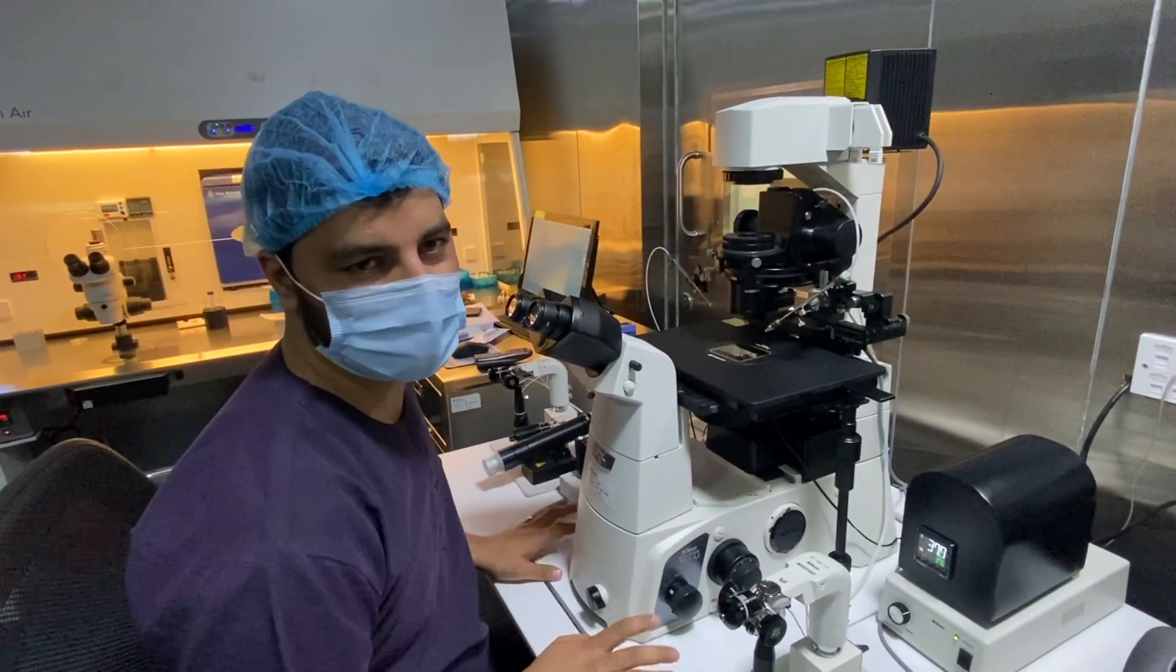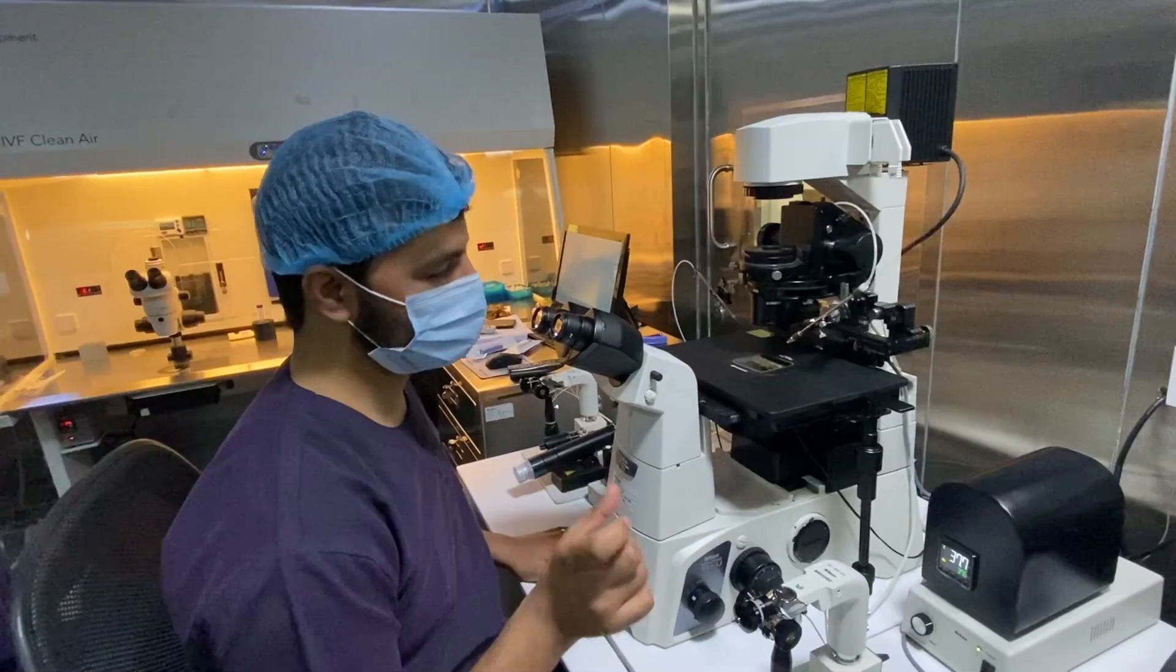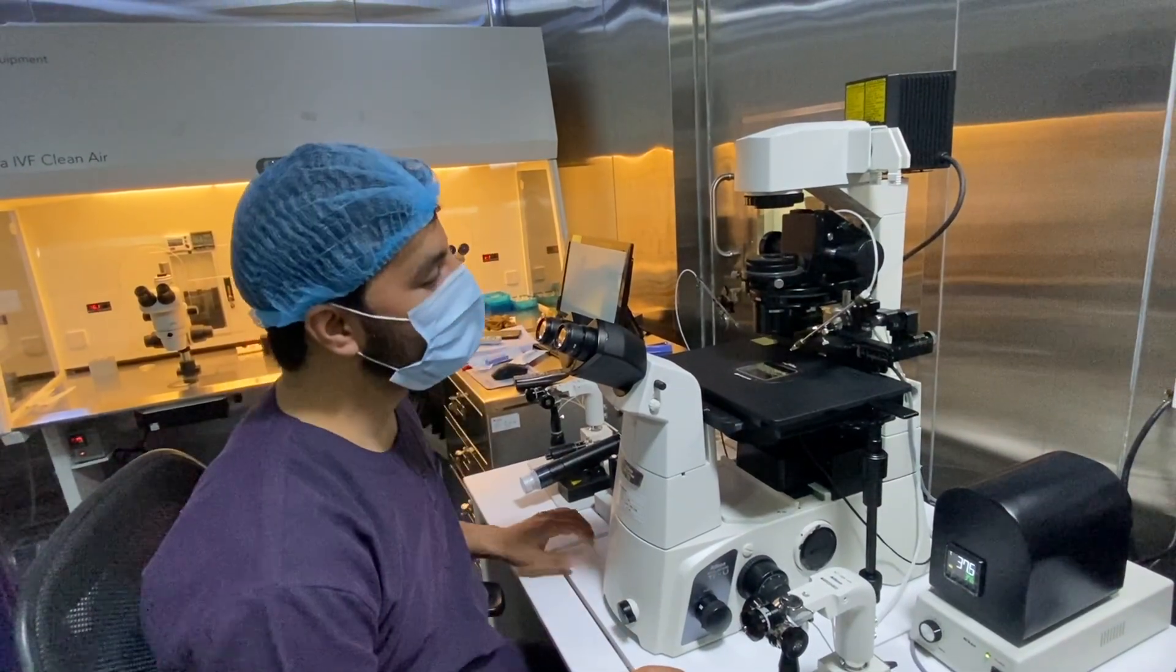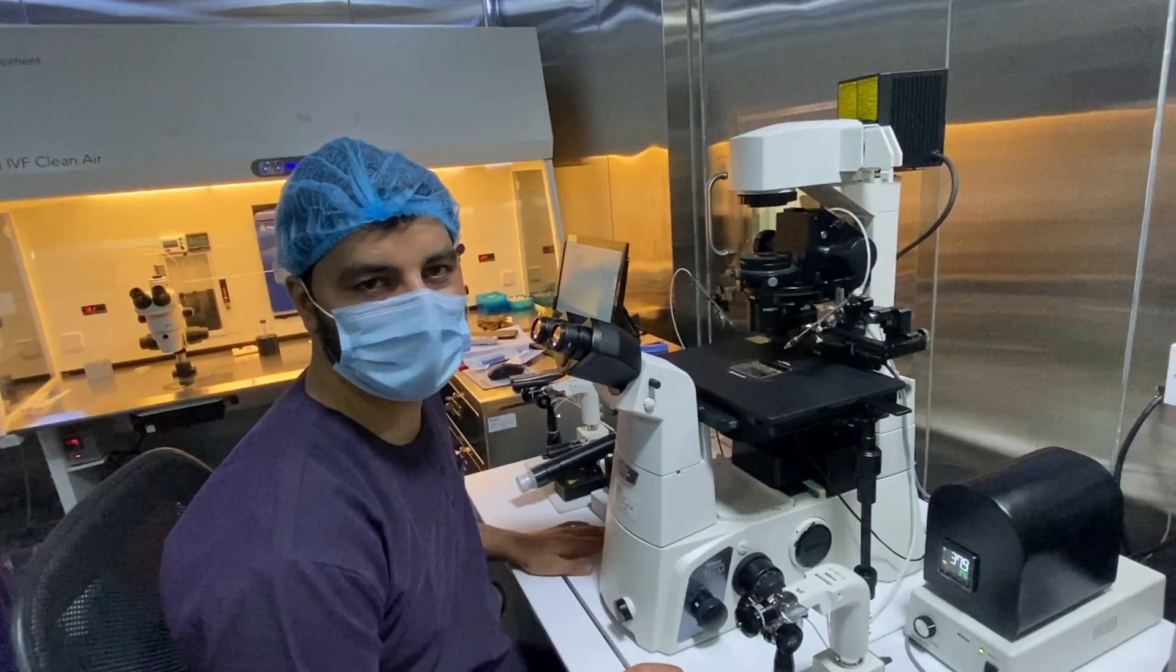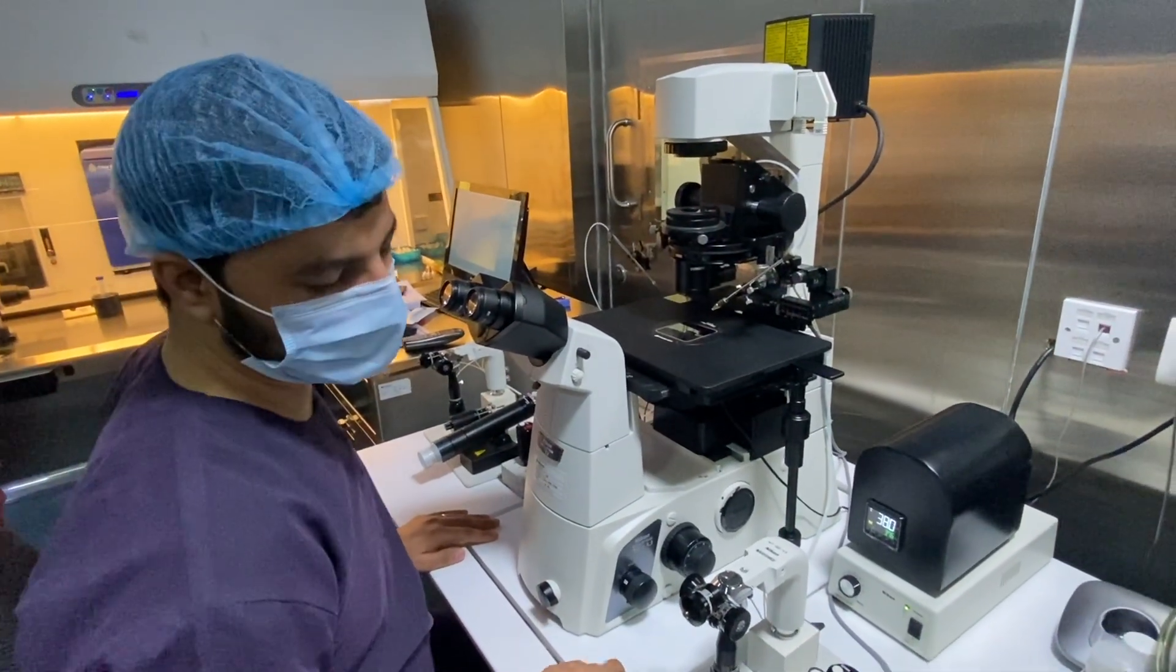This is a demo class so I will just show you. I have done a little bit up and down to the machine so that you can check how to align it properly. So we will first start with our joystick.